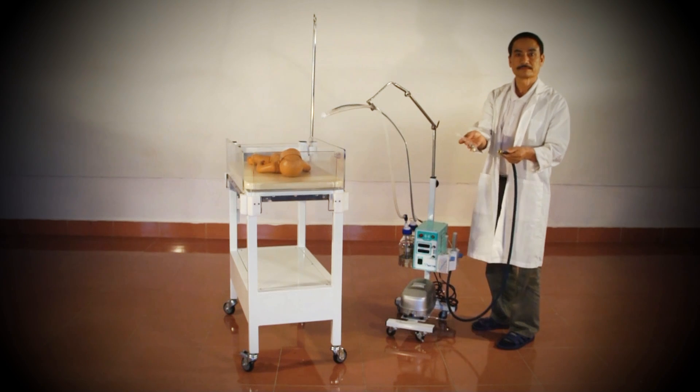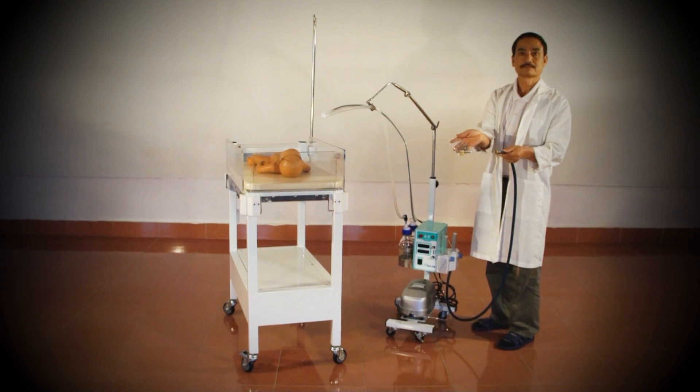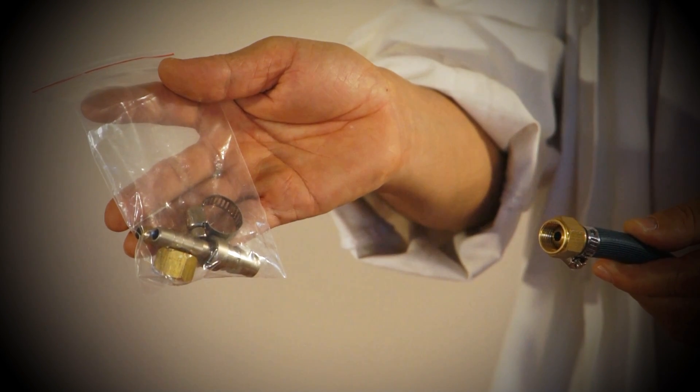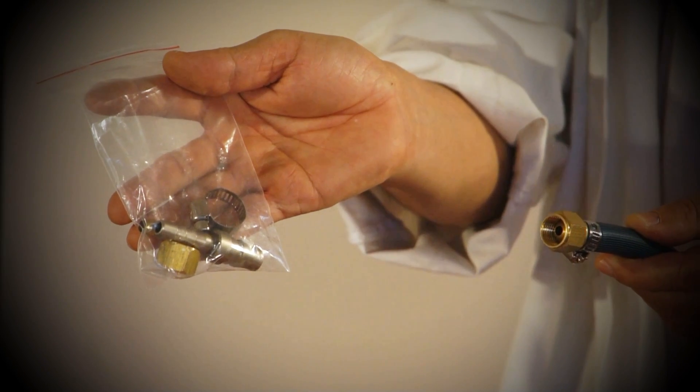The most common connector comes attached directly to the oxygen hose. The other two can be found in the plastic bag along with the ring clamp for securing them to the hose.